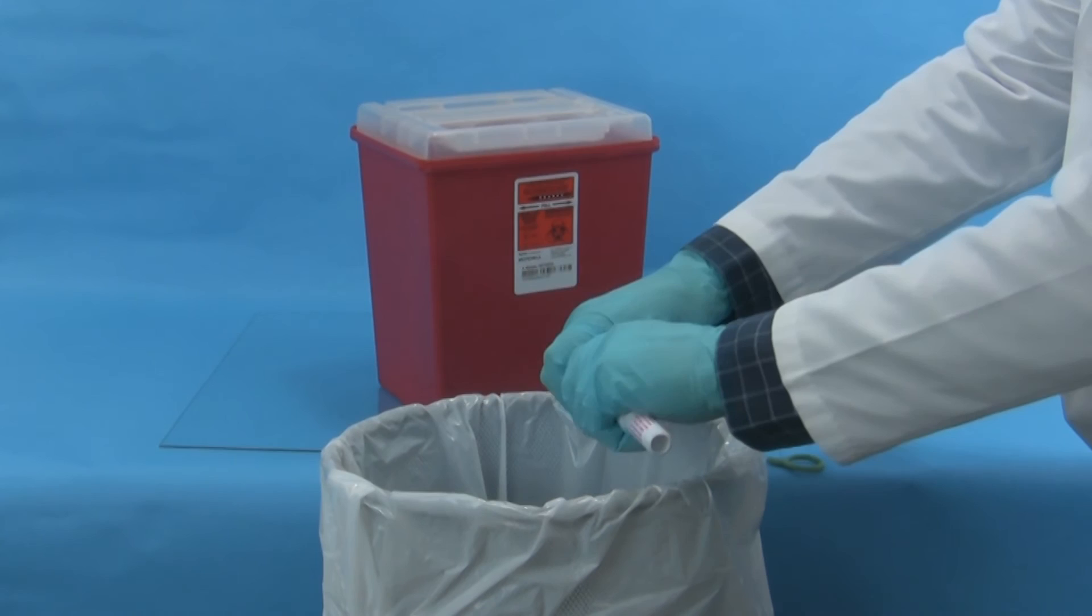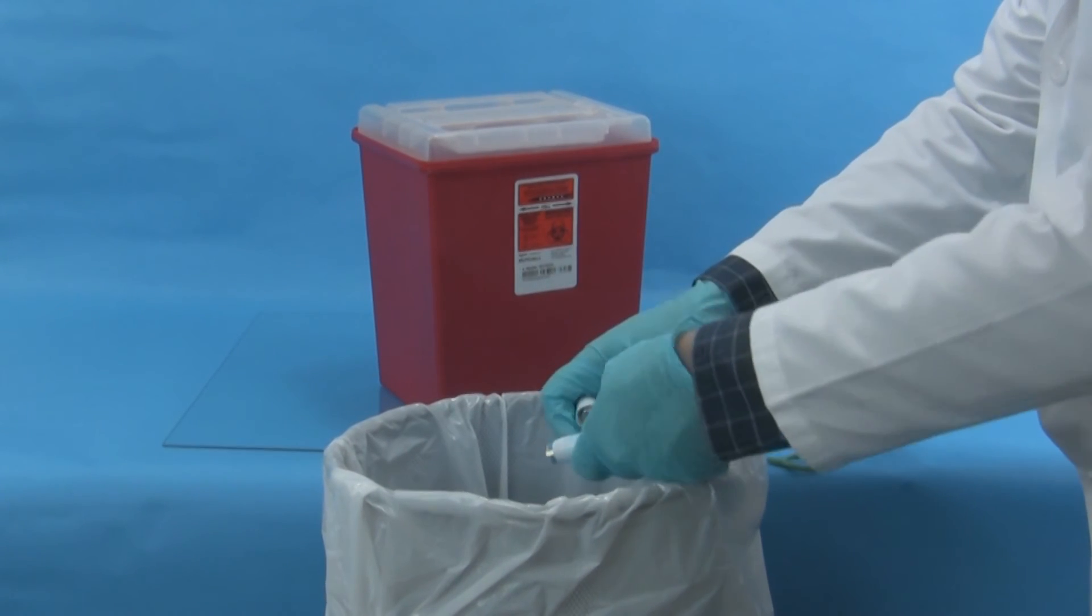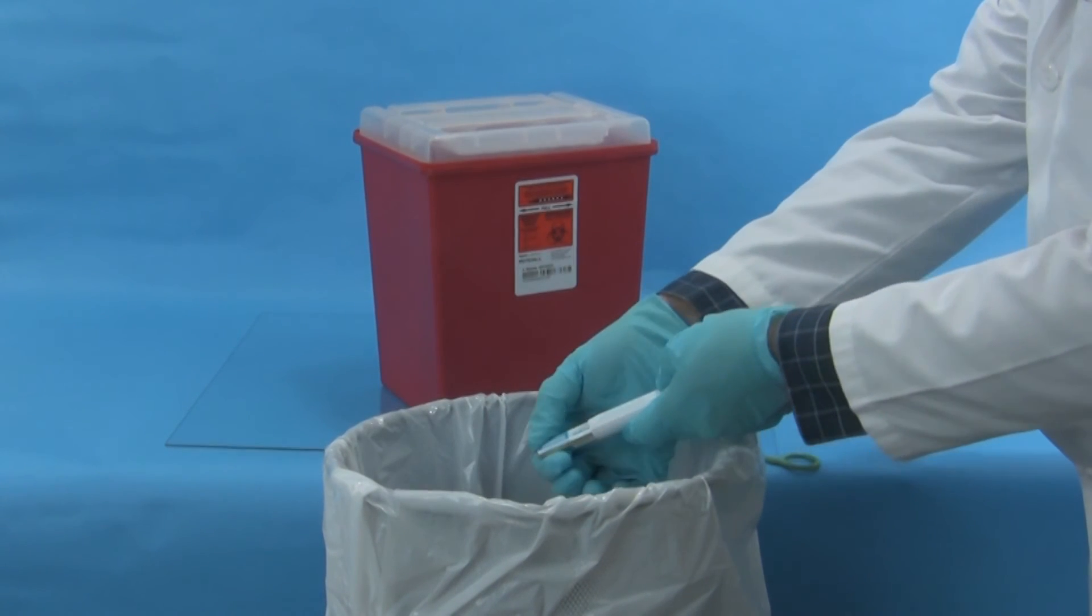Remove the batteries by breaking the end cap and dispose of the batteries as instructed by your facility.